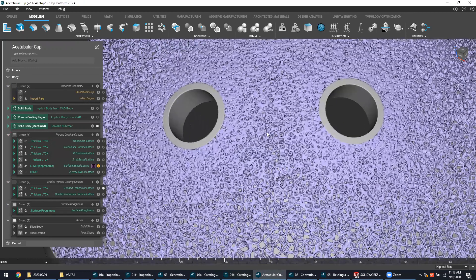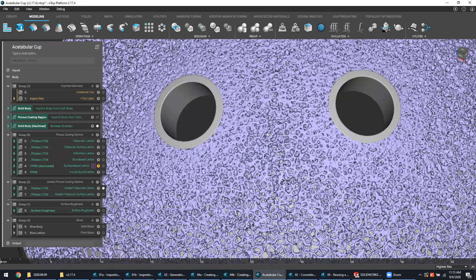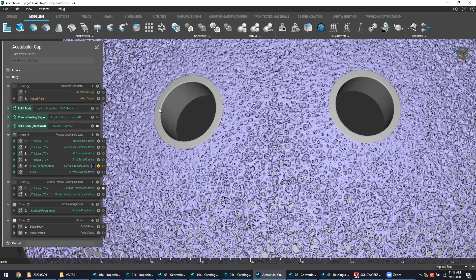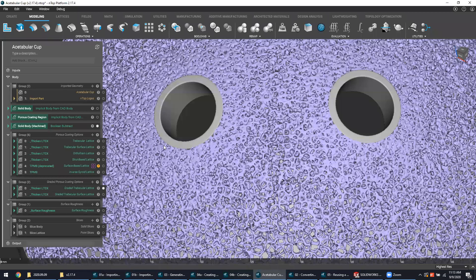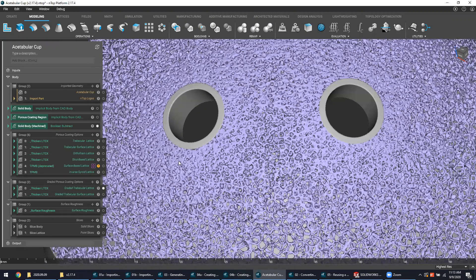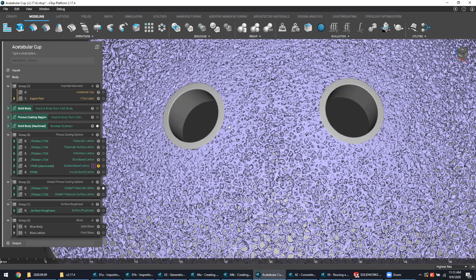What the gradient here is impacting is actually the density of the pores. With denser lattice pores focused specifically around the holes, it potentially serves as a form of reinforcement when this material is eventually drilled out on a CNC and threaded at a later point in time. This may not be immediately pertinent to what you're trying to do exactly, but it's just a way to introduce some forethought into your design process as well as some unique aspects for your company's product line.